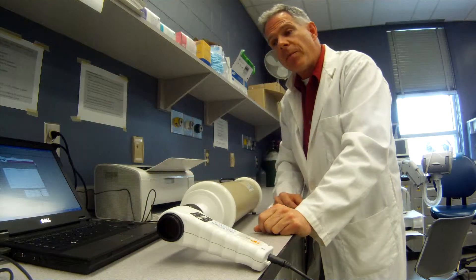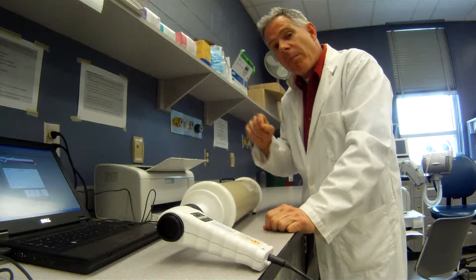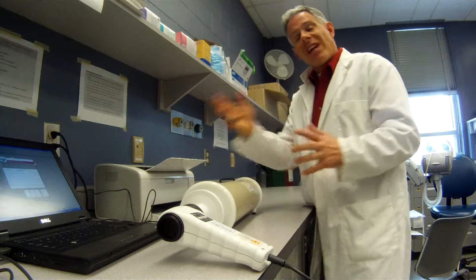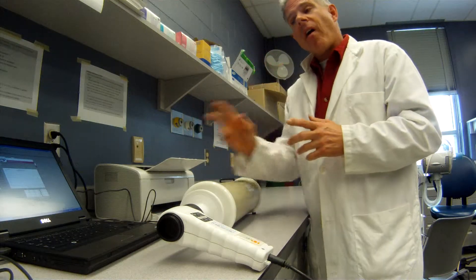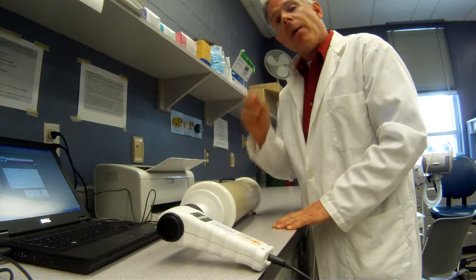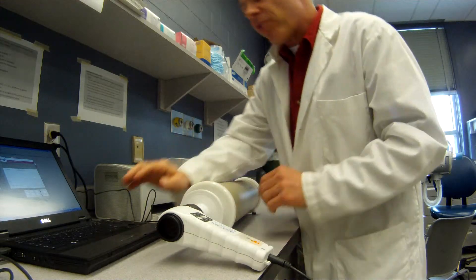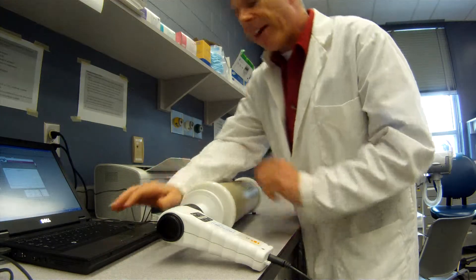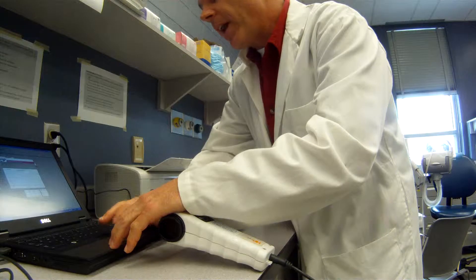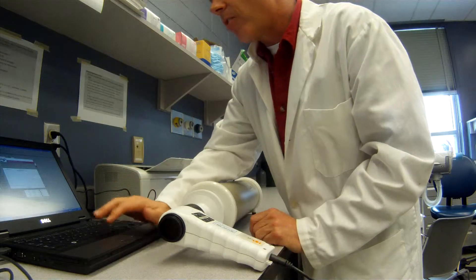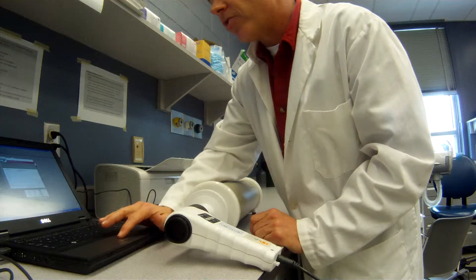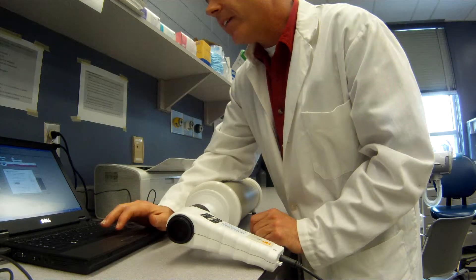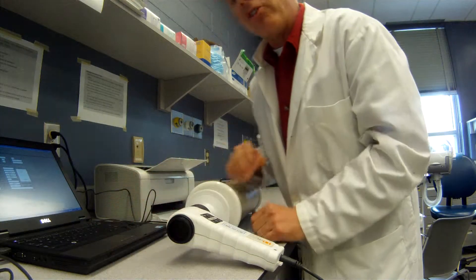So we can print off our calibration report, sign that as being completed and verified, and put it into our binder. So that's a little bit of an introduction on how to use the HD PFT-1000. Now there's one other little quirk about this device. When you go to do a slow vital capacity, this will not ever get out of this until you hit close. So you can print up this report, hit close, and now start putting in your patient data.